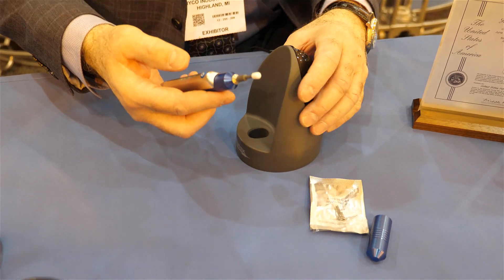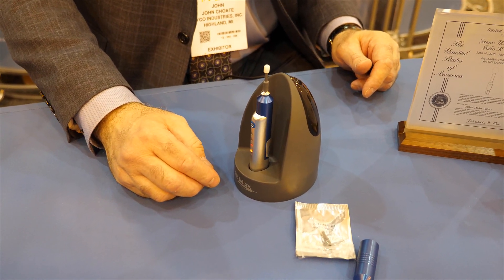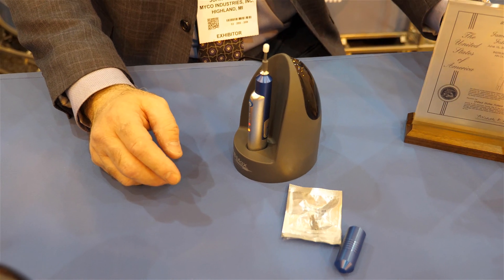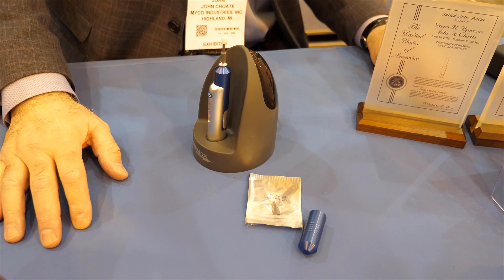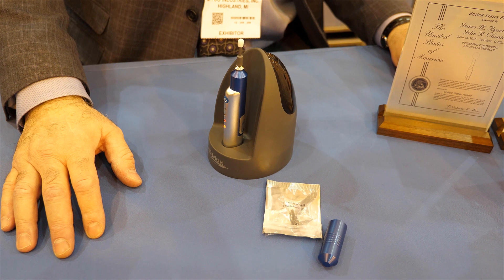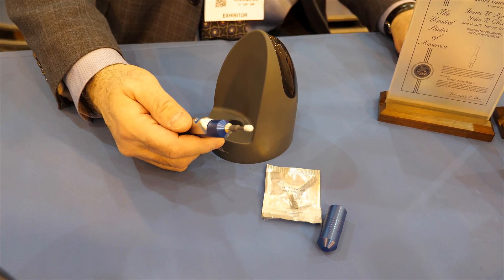Other folks are probably familiar with similar products. How is this different compared to other solutions on the market? That's an interesting question. I designed the first doctor's treatment for blepharitis. I thought of a better way to treat anterior blepharitis specifically because the first device that we designed only does forward and reverse motion — that's all it does.